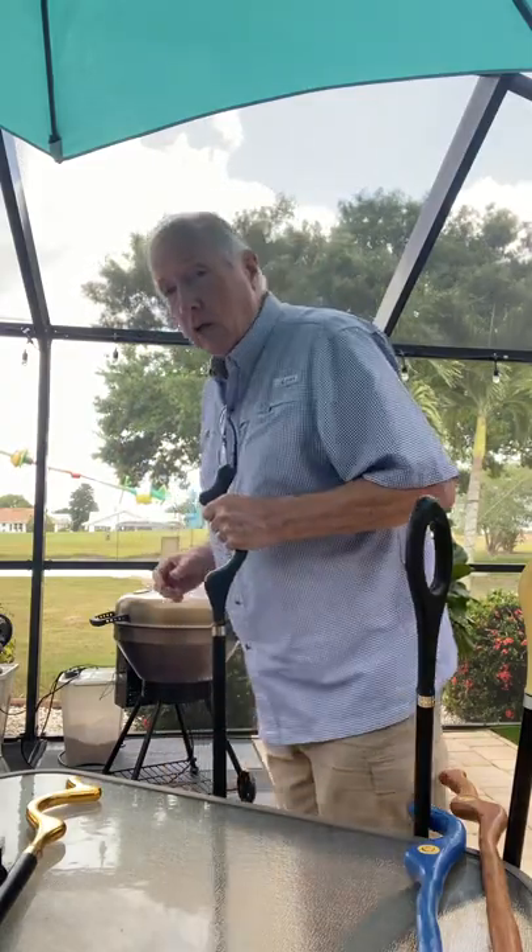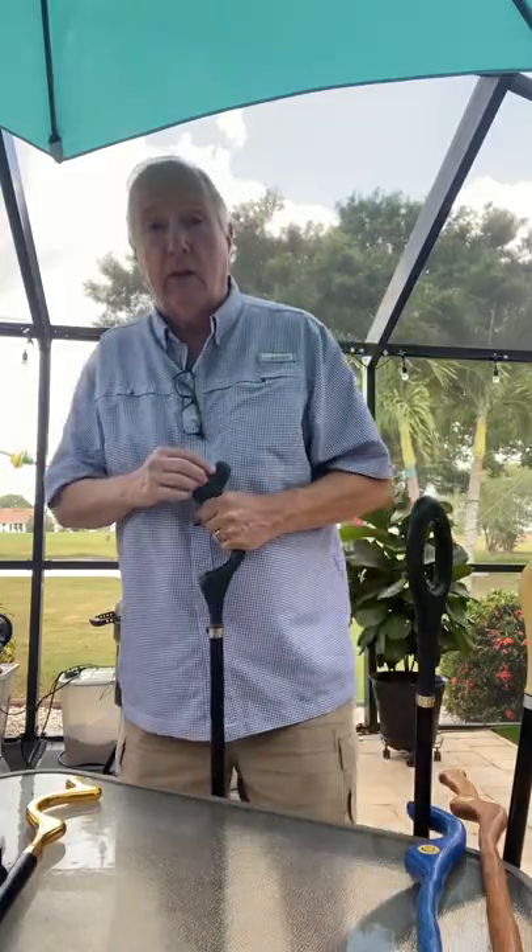We also discovered that it tightens your tricep muscle, and it also forces you to walk more upright. So if you're standing sideways, you'll find you're not bent over as much and you're not looking down.